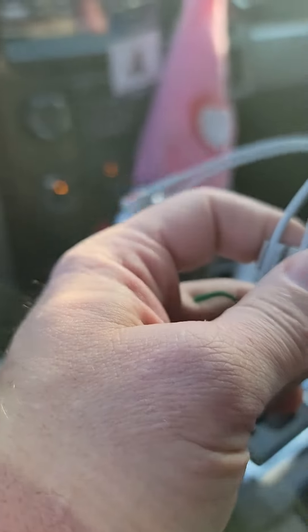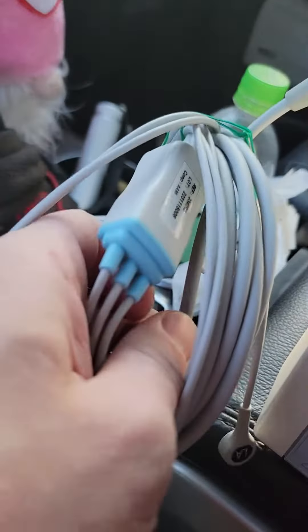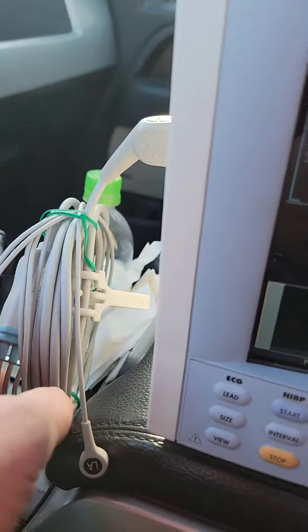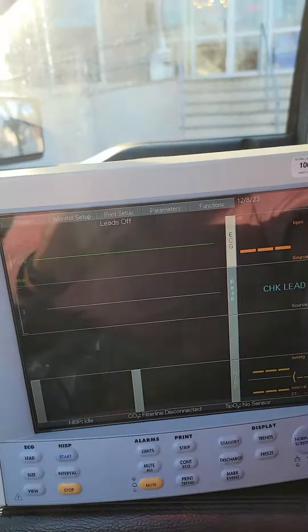which isn't a bad brand, they make good quality stuff, but it doesn't have a resistor in it, so it can't tell if it's 3-lead or 5-lead. So you have to take it off auto.